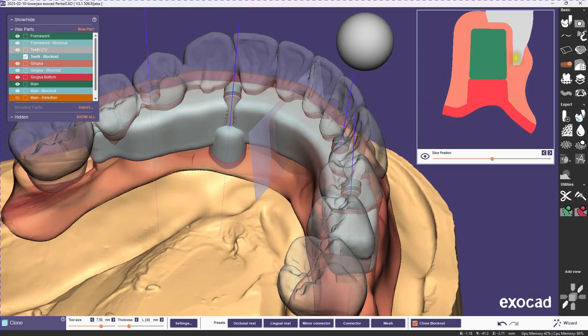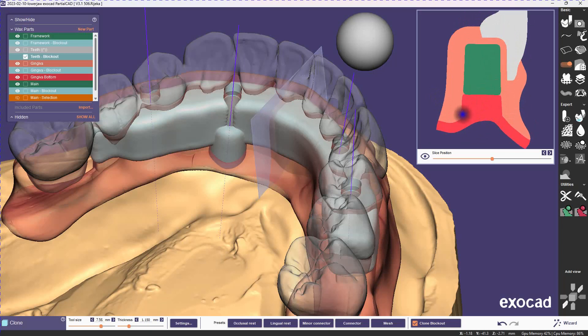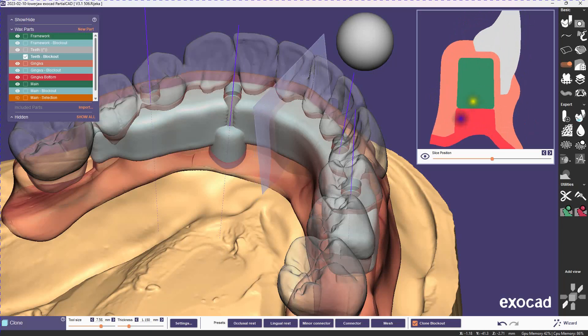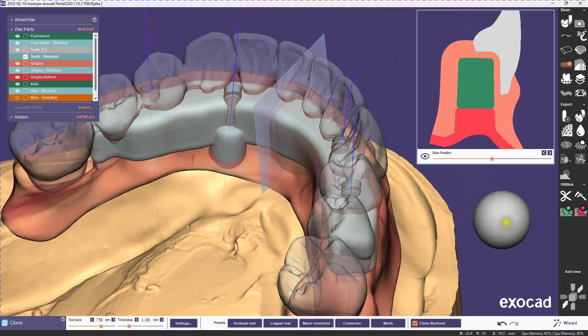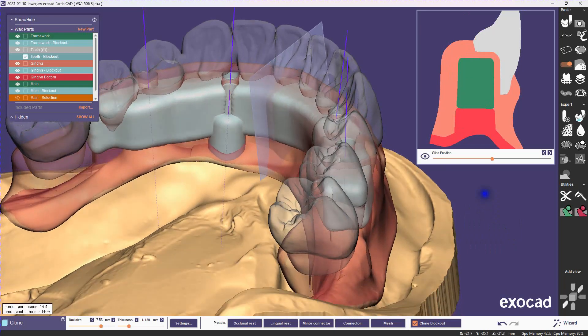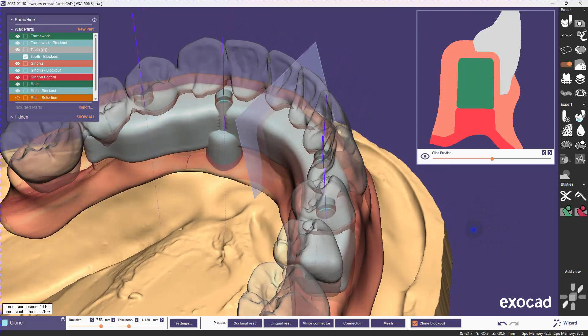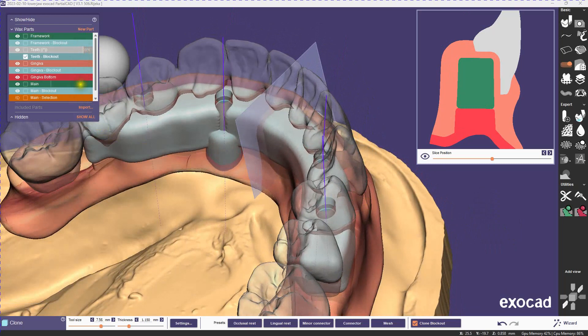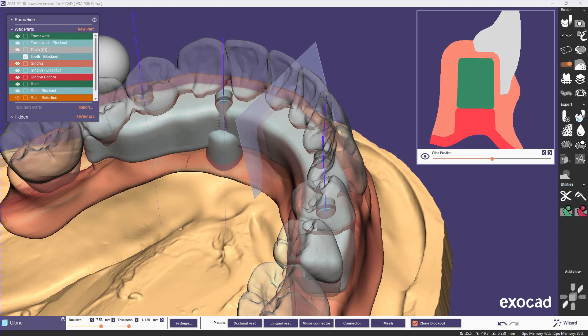So there you see what the result will be. You'll have that 0.7 millimeters of gingiva going between the tooth and the bar, and it'll look more like a traditional tooth pocket. I think the main advantage here is that the top of the gingiva is connected everywhere, which I assume makes it easier to assemble. It's up to your manufacturing process, what works best.